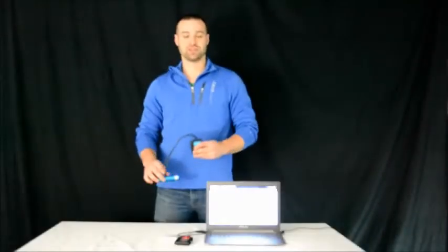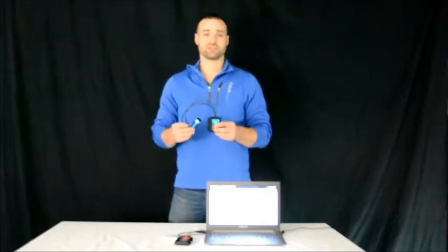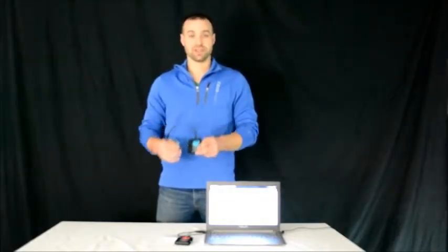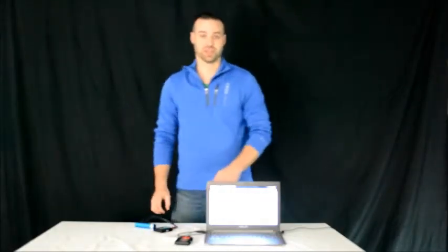Hi, today I'm going to demonstrate the Nulog's spirometer sensor which is used to measure total lung capacity. It's also an excellent supplement to any physiology or exercise experiments.